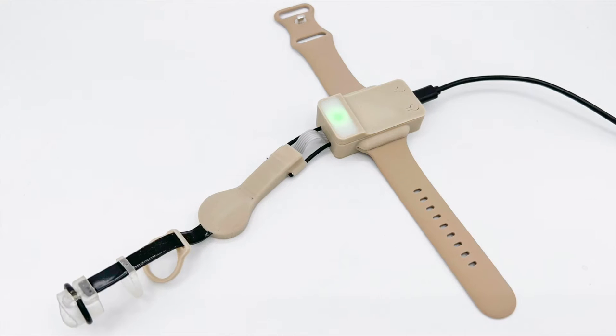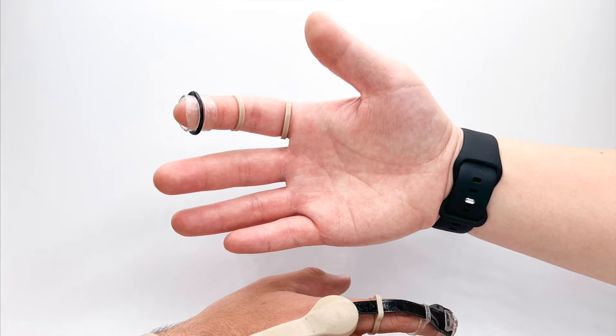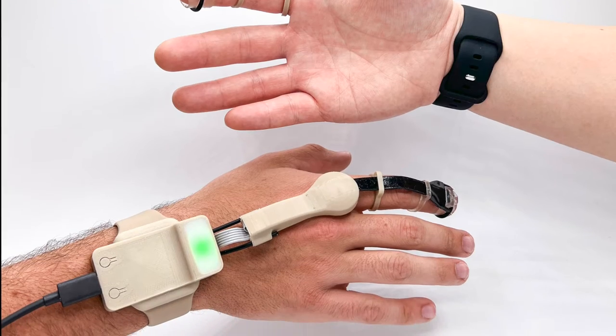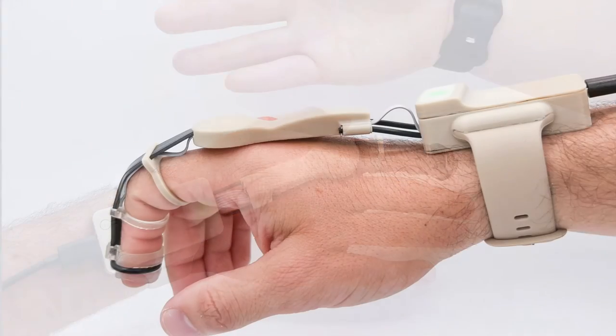We present FlexFix, an assistive monitoring device which provides visual feedback on finger flexion and force. It enables individuals with hypermobility to better manage the use of their fingers to minimize symptoms such as fatigue, redness, and locking of the joints.